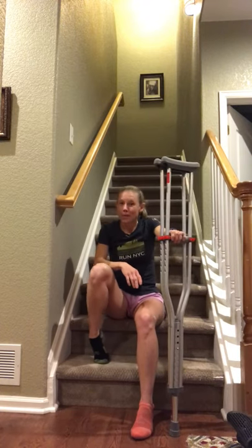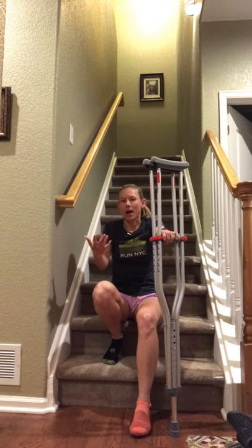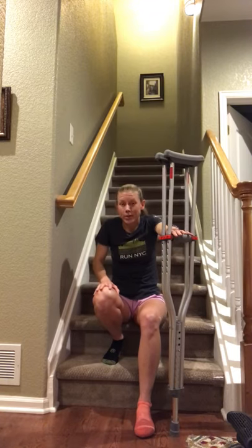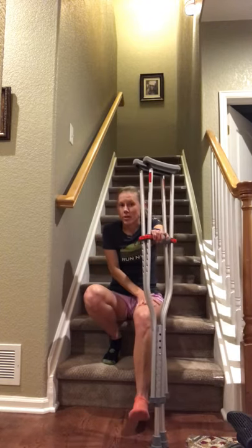If you've spent some time on crutches or have been educated by a physical therapist, you may have heard the rule: 'up with the good, down with the bad.' The good leg is either your strongest leg — after surgery it's your non-operated side. For hip dysplasia patients with pain on both sides, whichever leg is less painful is your good leg. Your bad leg is the side you had surgery on — weaker or more painful — and the crutches always go with the bad leg.